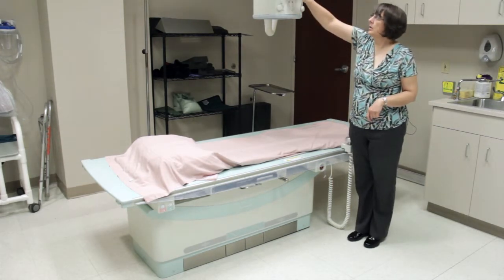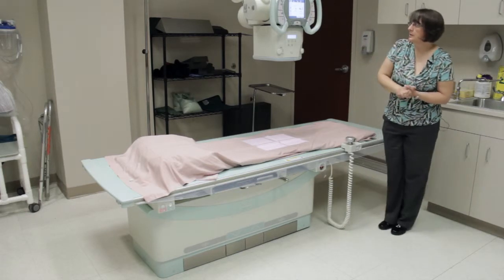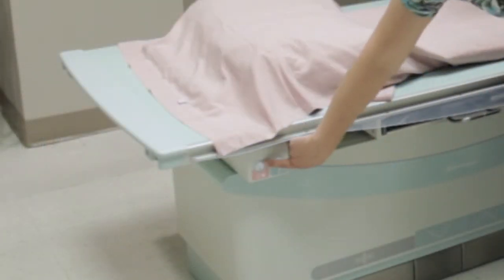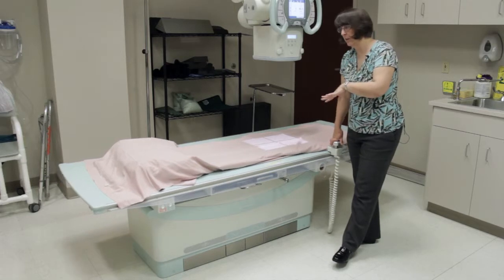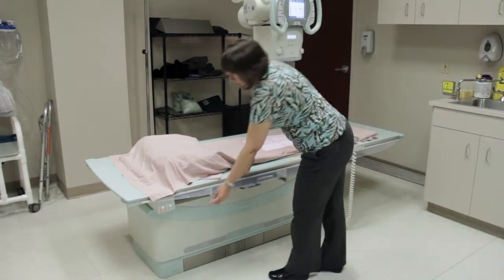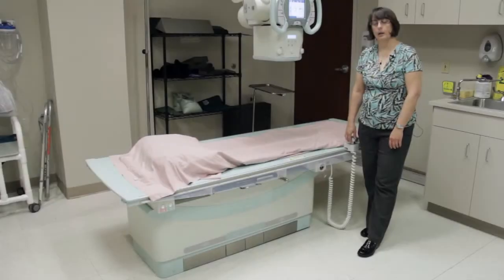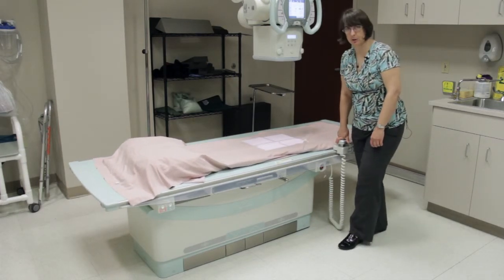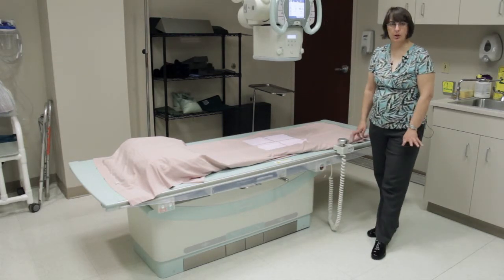Once on the table, our auto-position is going to put us right at 40 inches. We have two more buttons at this end of the table. The first locks your transverse movement — if you want to do a study going just up and down without the table moving sideways, you can activate that lock. The second button is also an auto-track and will track you to 40 inches to your table. The weight limit on this table is 650 pounds, and that is with all table movements — you can still lift and cantilever any way you need to; all table movements are allowed at 650 pounds.